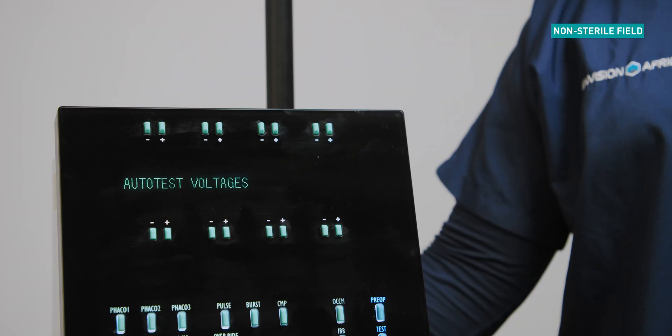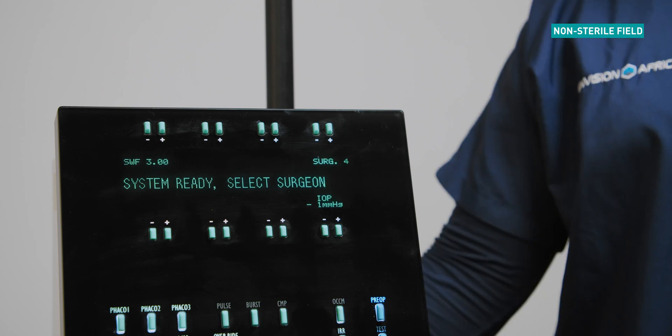If the startup function has been completed successfully, the system ready message will be displayed.